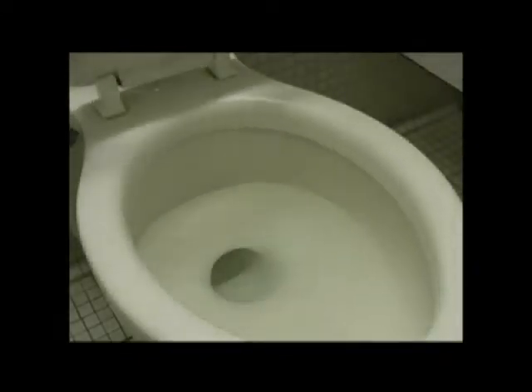When you are ready, first you open the sheet of paper and lay it flat on top of the water inside the toilet. Don't worry about clogging your sewer system. After you are done, this paper can be flushed just like toilet paper.